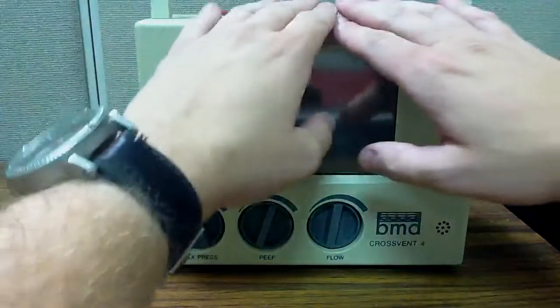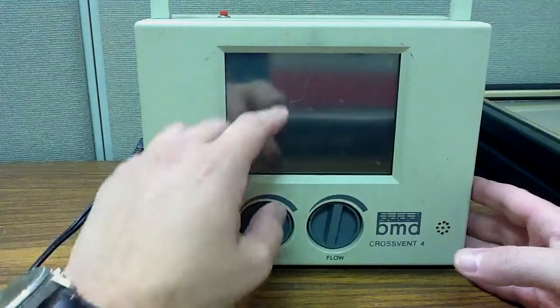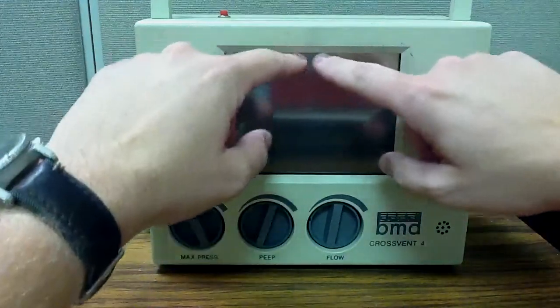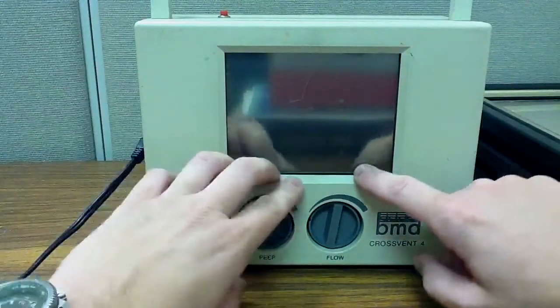You're looking at the front of the ventilator. As you can see, it's not a particularly large ventilator. Most of the interfacing will occur on this touchscreen here when it's on, and I'll show that to you in a bit.